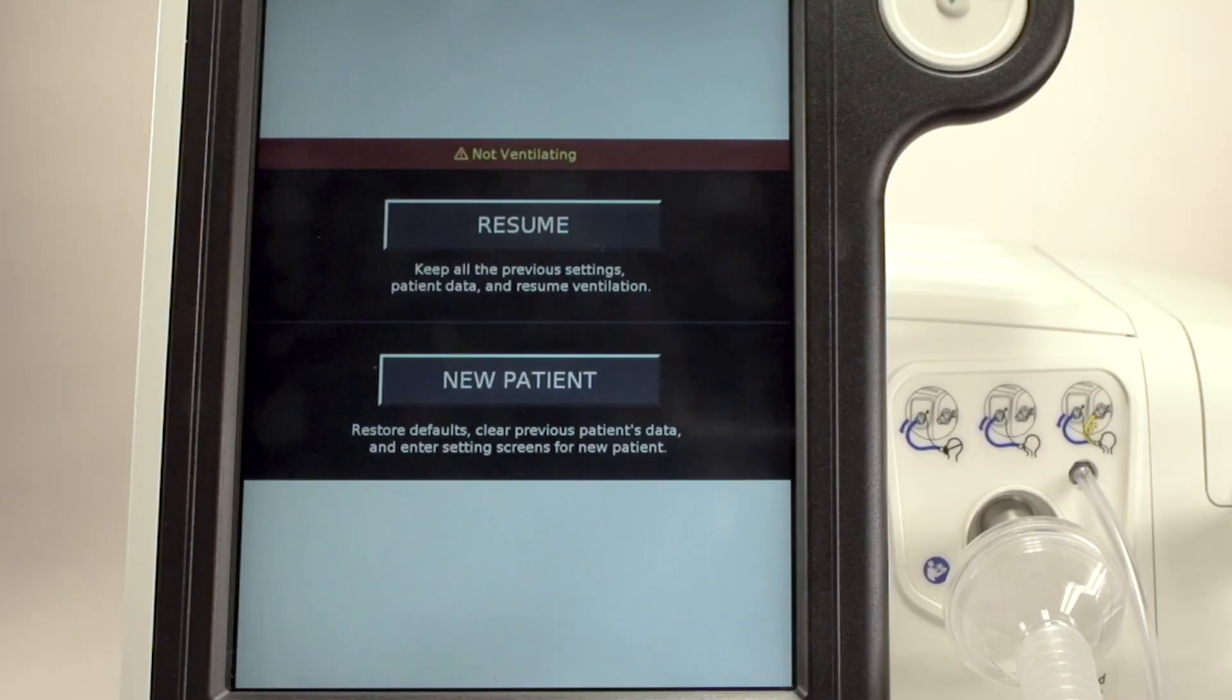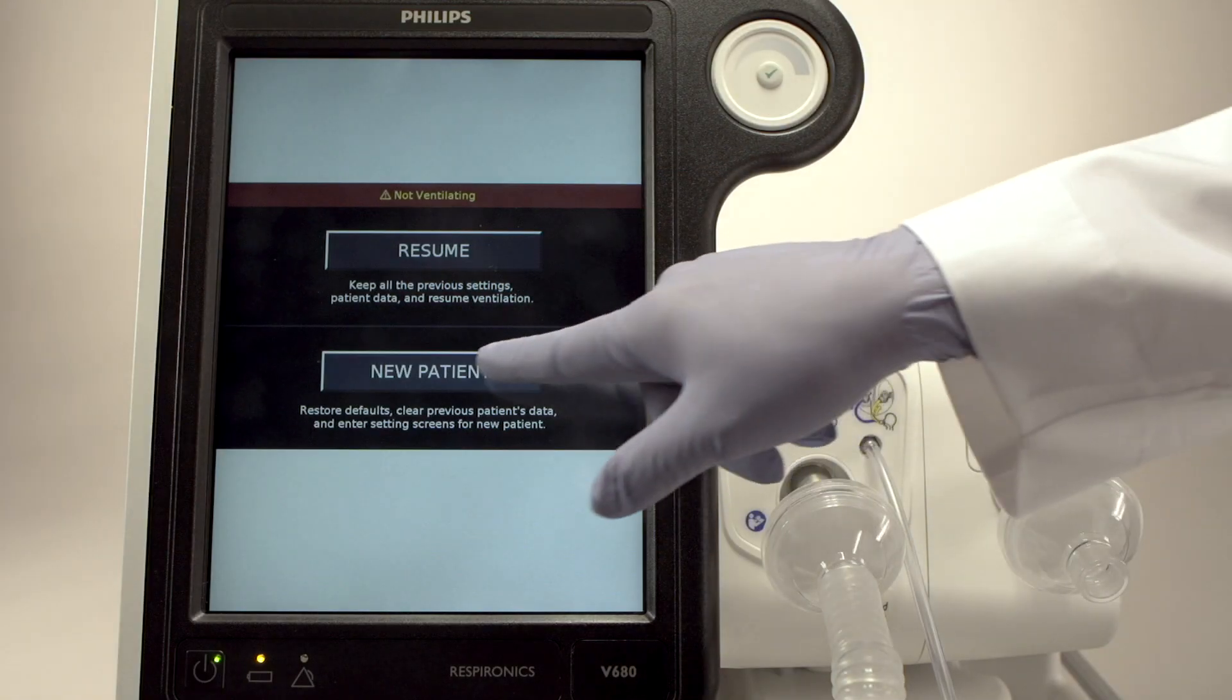After the Power On test is completed, V680 gives you the option of continuing with the settings that were active when it was last turned off, or starting over with a new configuration. For this demonstration, let's touch New Patient.